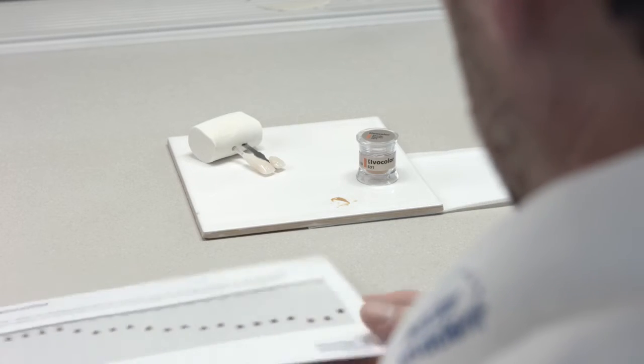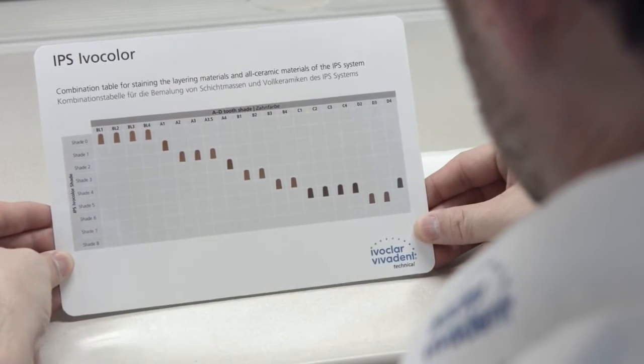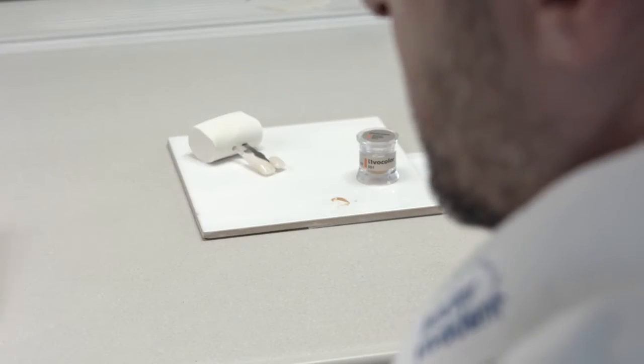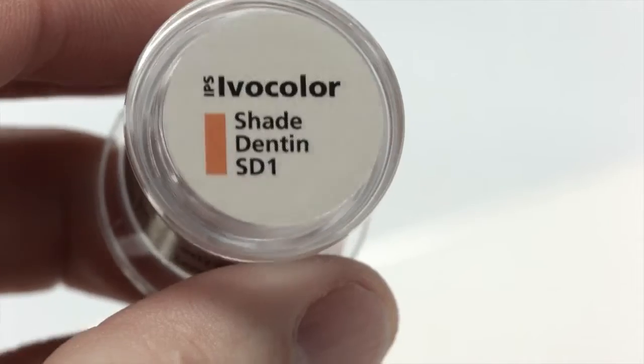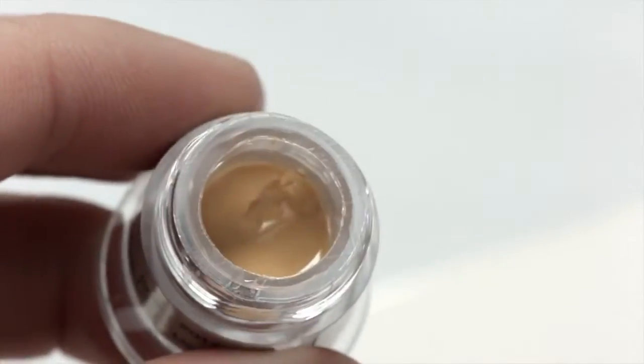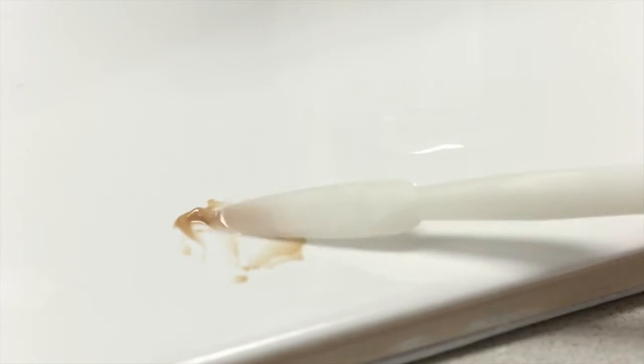Select the relevant shade from the Shade Allocation Guide. The table can be found in the Starter Kit, Shade Kit, and in the Instructions for Use. Now take the required amount of IPS Ivocolor Shade and mix thoroughly on a mixing tray using a metal-free spatula. Dip the spatula into a little IPS Ivocolor Mixing Liquid, All Round or Long Life, and mix the paste with the liquid to the required consistency.